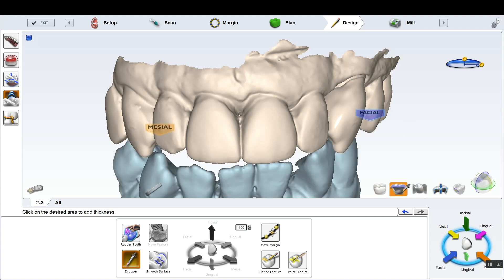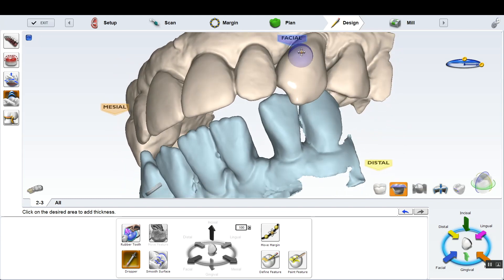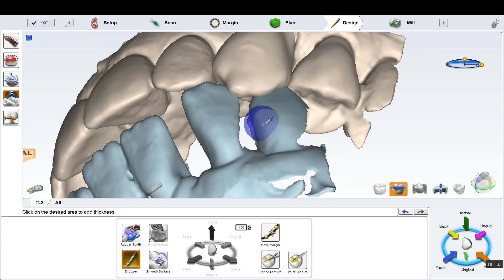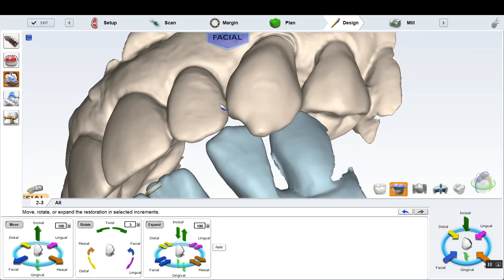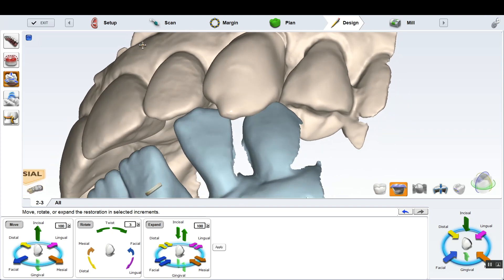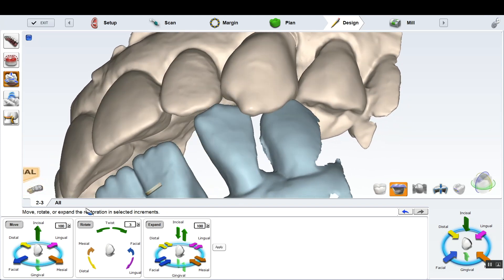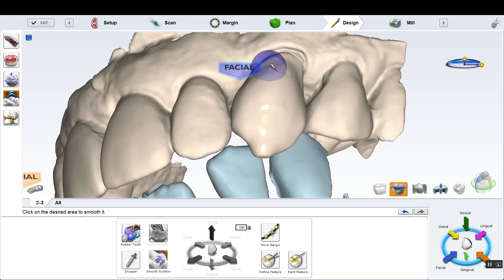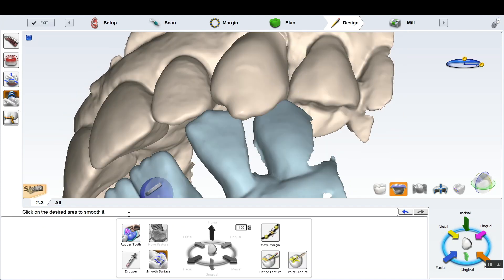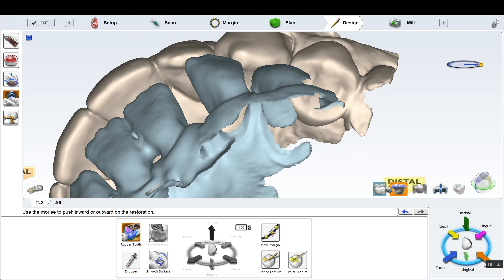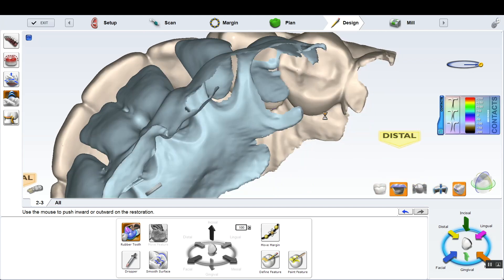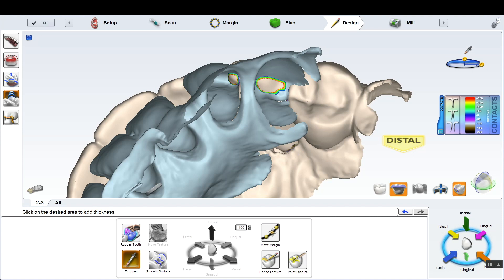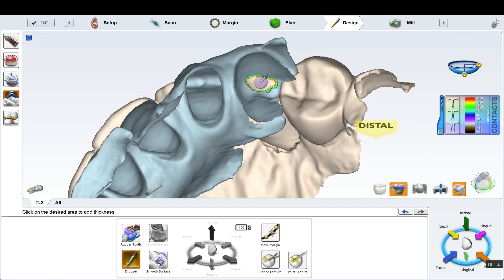Check the occlusion here. I'm going to see that I'm just a smidge long. So I'm going to go ahead and just kind of manipulate that tooth and just bump it up a little bit. And then I'm going to come from the lingual view and just kind of use dropper negative. So dropper does go down to negative, which is kind of cool. So I'm going to go dropper, drag that down, and just kind of zip it a little bit.